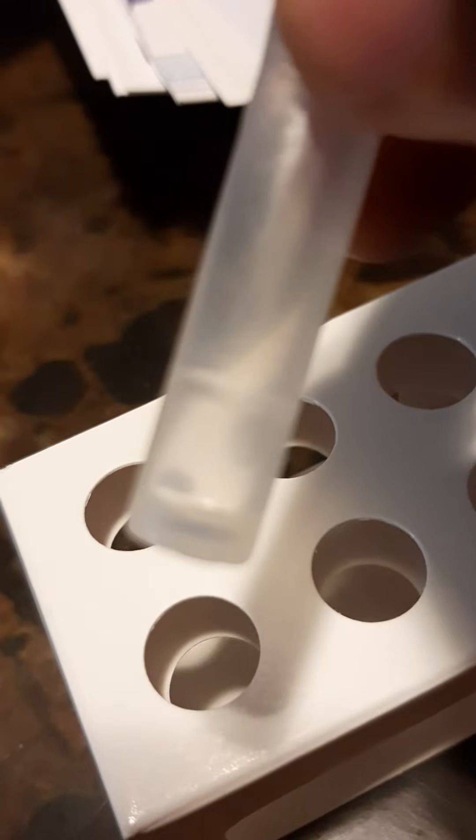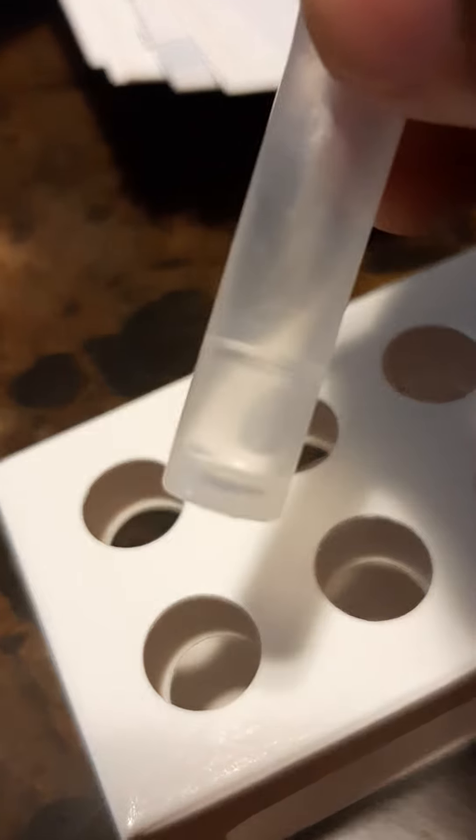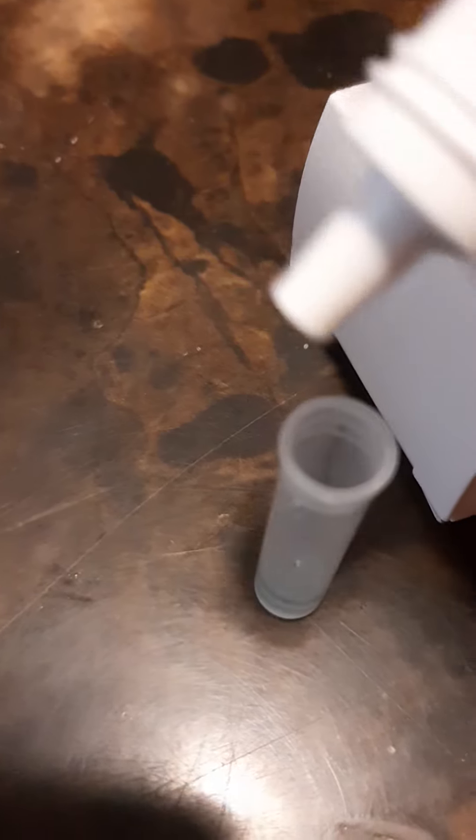Fill it to the line. That says seven drops, like seven drops, then fill it to the line.